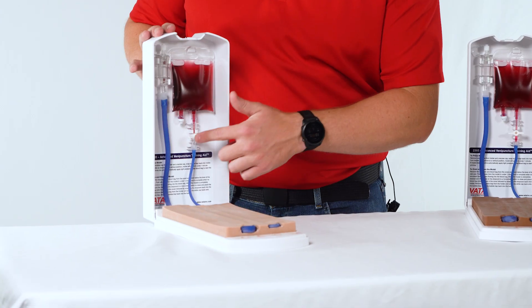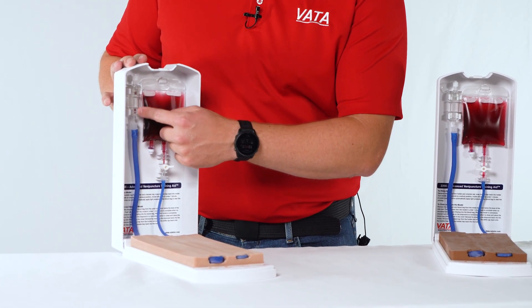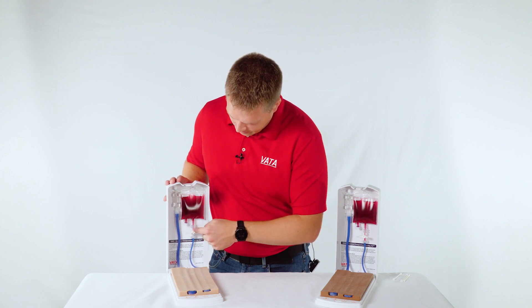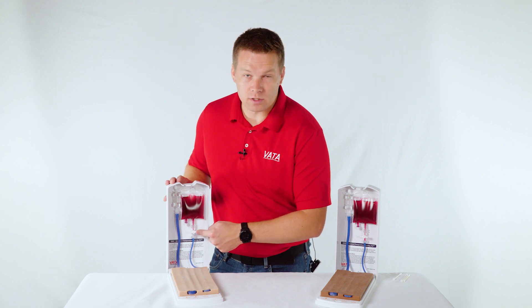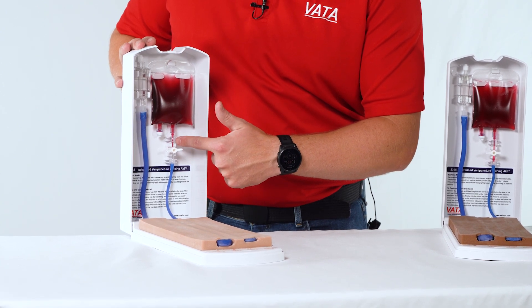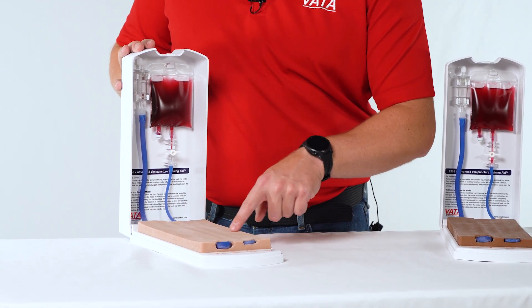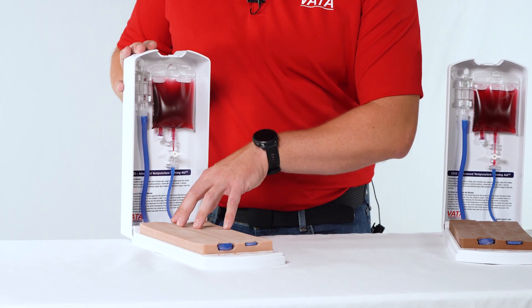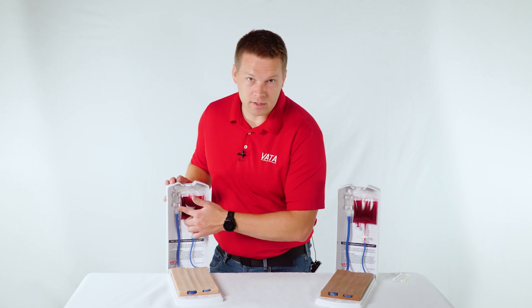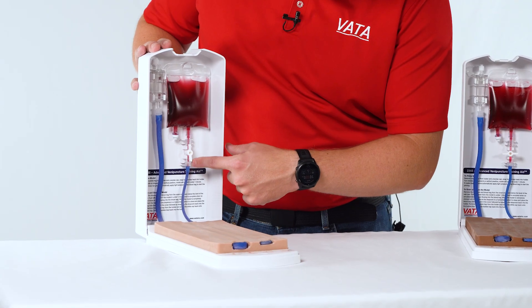As you look at the model, you're going to see the blood bag on this side. The tube runs into the model and exits on this side to the bubble trap. Remove the cap off the bubble trap, and then take the stopcock that's turned horizontally and switch that to the vertical orientation. As soon as you do that, you should see blood come through the stopcock, through the connectors, and enter into the vein. It's going to go through all four of the veins — it's all one continuous vein — and you'll see it come up here when it's full and ready to use.